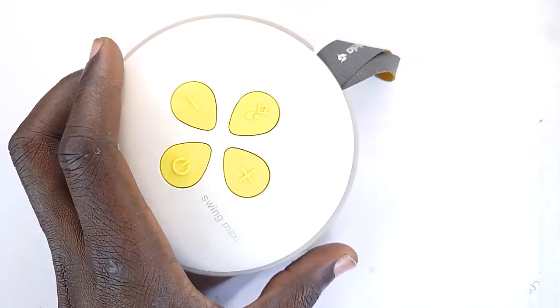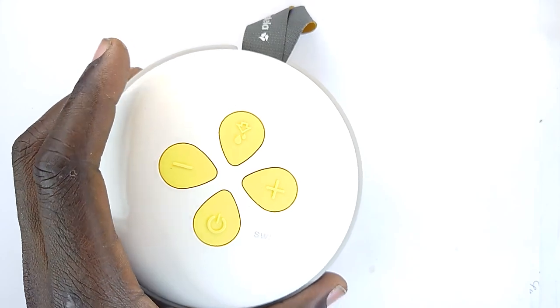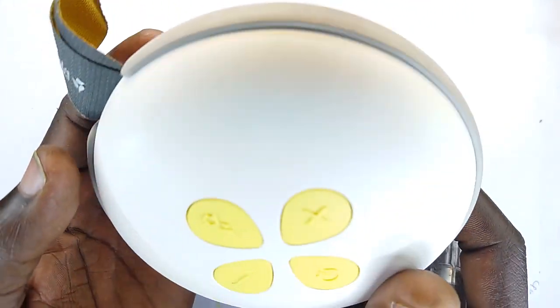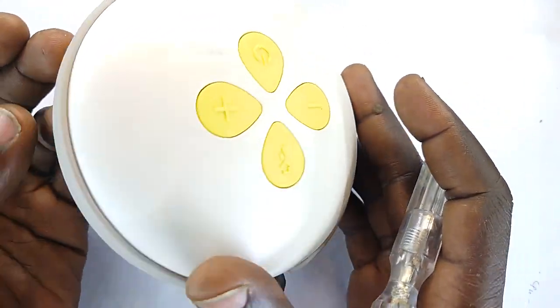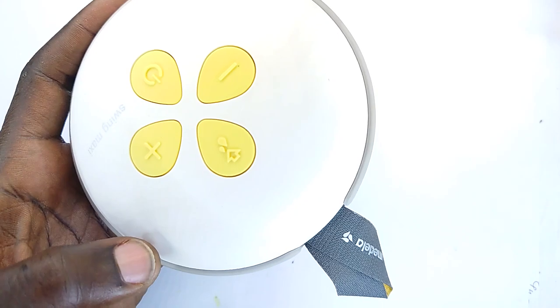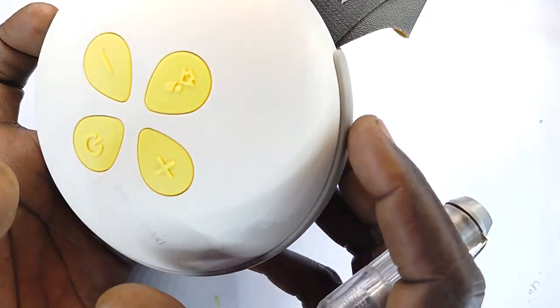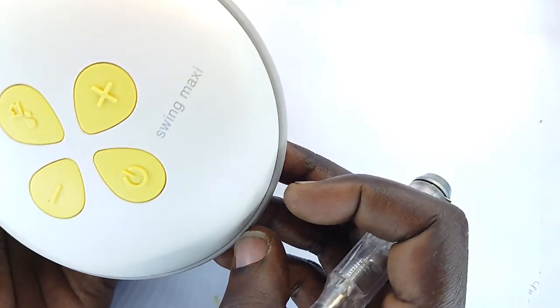This is a breast milk pump — you could call it simply a breast pump. These are normally used to help you pump milk into bottles for your toddler to consume later on when you are away. You could think of it as a mechanical device that latches onto the woman's breast and is used to extract milk from the breast.